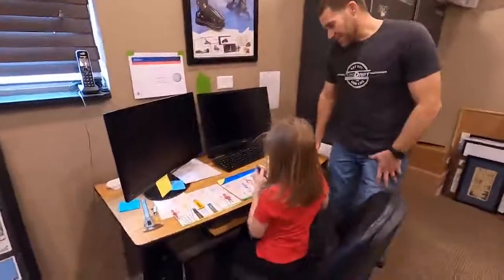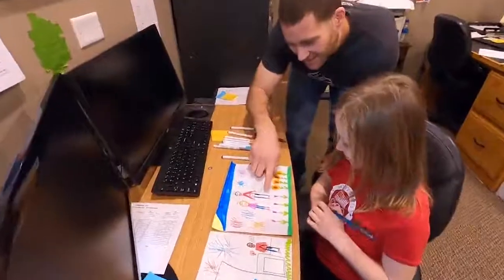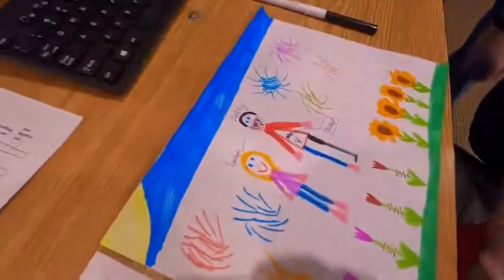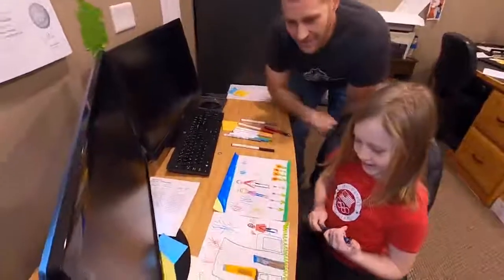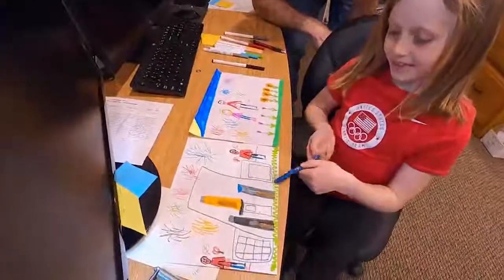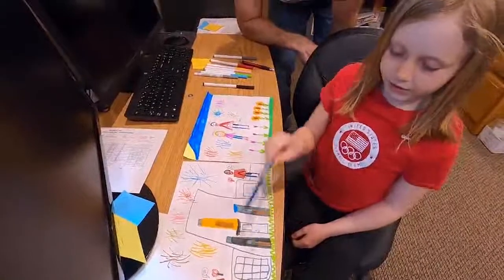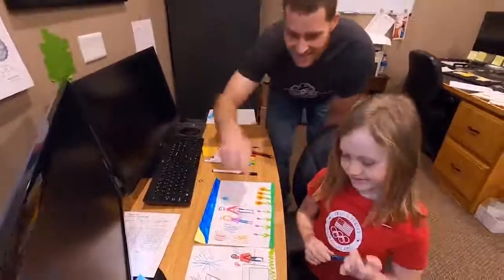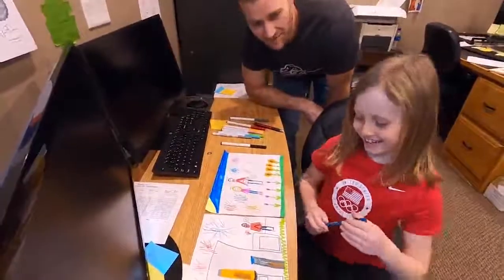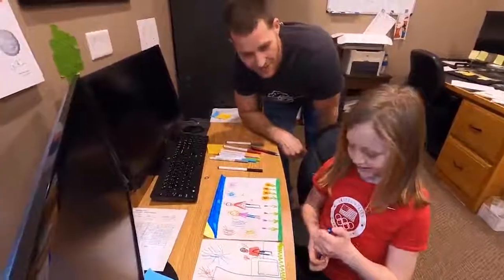This is our second office, and today we've got our lead designer in here — Lauren. Lauren, what are you working on? She's working on some of dad's prosthetic legs. This is a prosthetic — that's my everyday walker. And what do you have drawn there? This one shows a new BioAdapt with a kids' version, girl-sized, and then this is his championship leg from Pyeongchang — that's the gold one. And this is the new building we're gonna build someday so we can build way more legs.